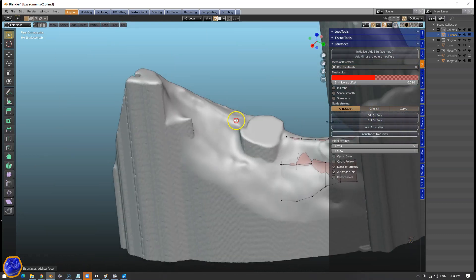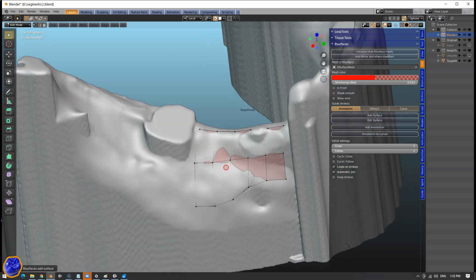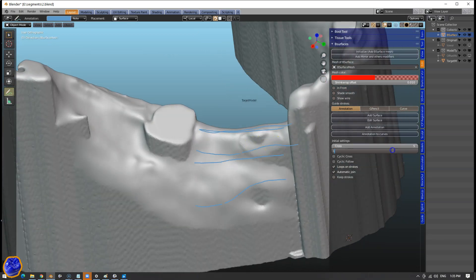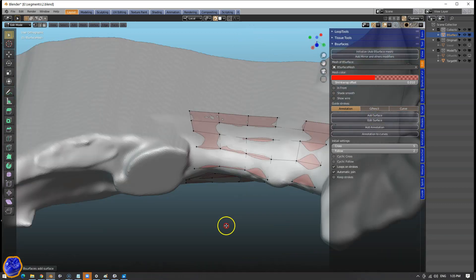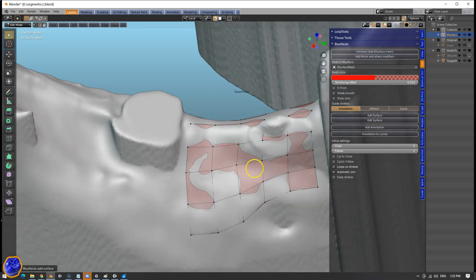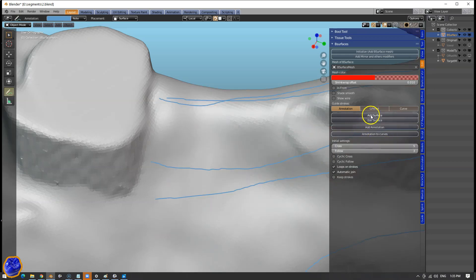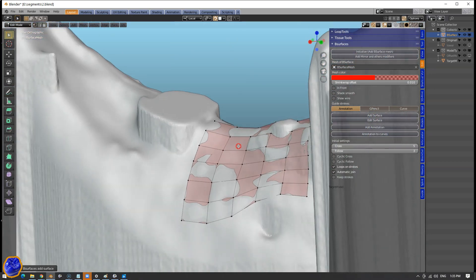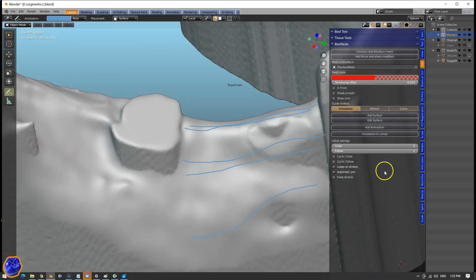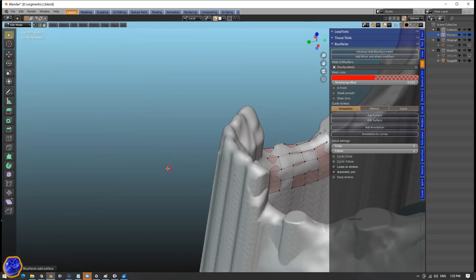And then click Add Surfaces. You'll see we've got rows and columns — five and one. So we can change that. I'm going to go back and explain how this works. We're going to click on two — you can see there are more squares. If I click on five we have even more squares. Note that we do not want too many squares, because we want to end up with holes going through this. Set it to two and this is looking good.